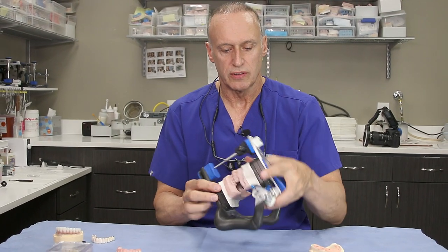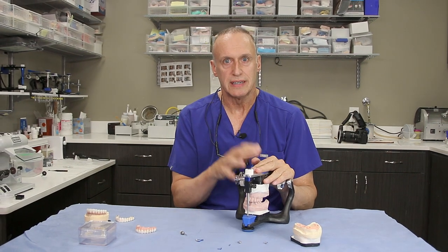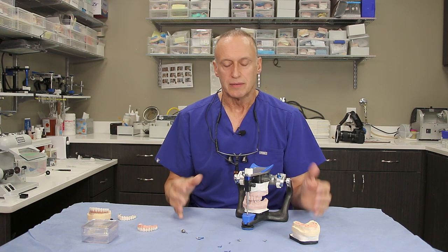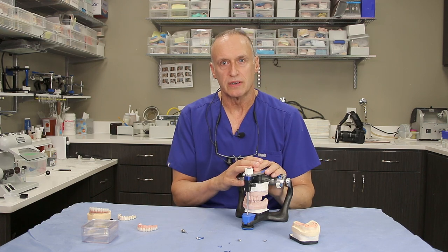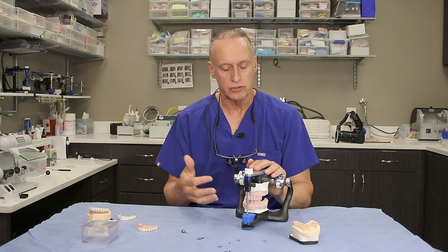This is an articulator and I would certainly hope that every office in implant dentistry would be using articulators for all of their reconstructive efforts. There are a lot of shortcuts being taken and most of it's about saving money, but an articulator is an invaluable piece of equipment in our armamentarium for dental implant treatment.